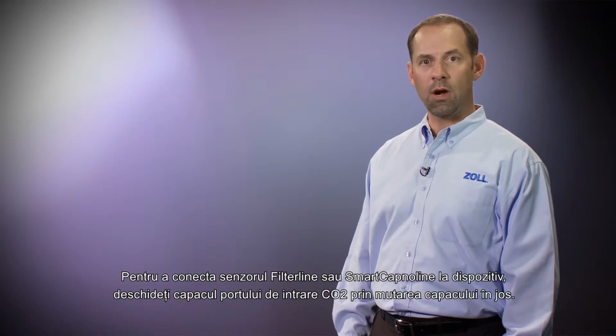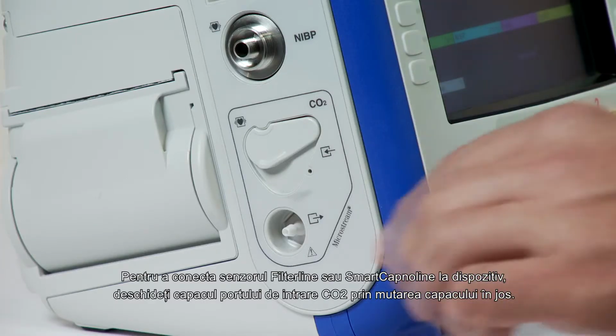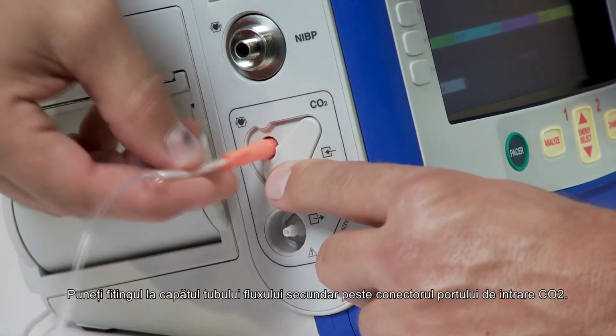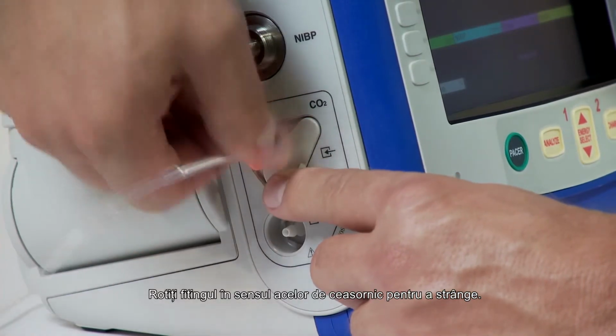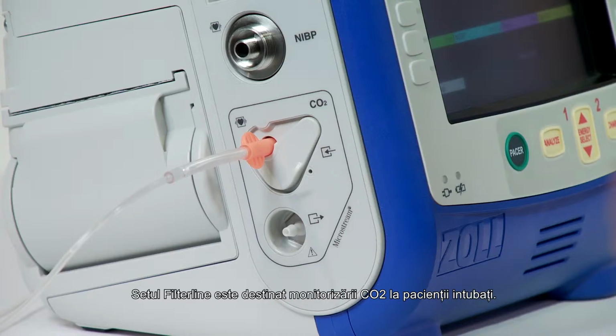To connect the filter line or smart Capno line to the unit, open the CO2 inlet port cover by moving the cover downwards. Put the fitting at the end of the sidestream tubing over the CO2 inlet port connector. Turn the fitting clockwise to tighten. The filter line set is intended for the CO2 monitoring of intubated patients.